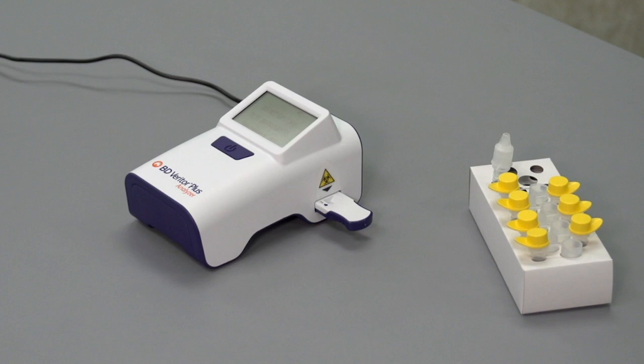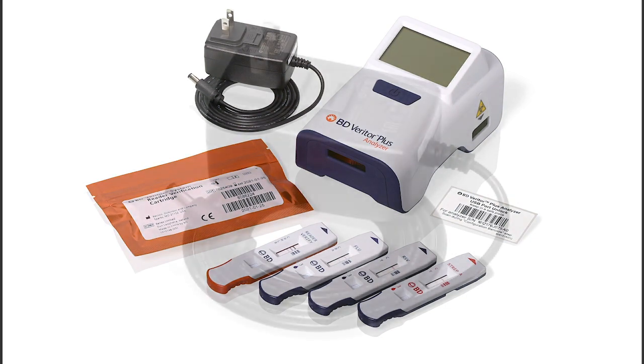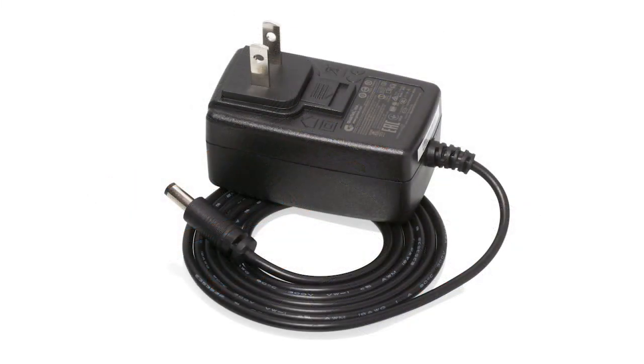The BD Veritor Plus Analyzer should be charged using the power cable upon unboxing and anytime power gets low. The power cable is also used for walkaway mode testing, which will be covered later in the video.